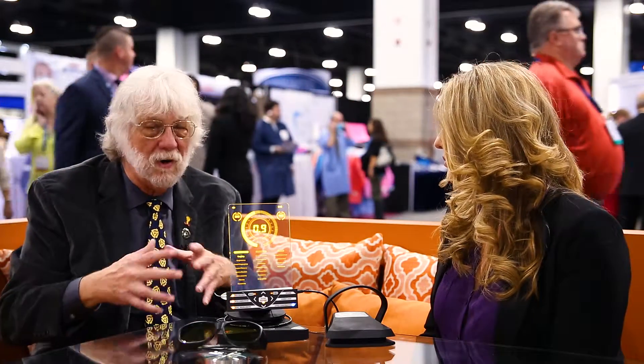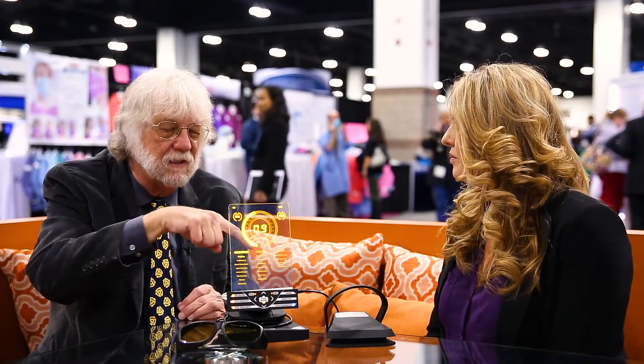It's a thousand dollars down and six months to pay. So any dentist should be able to walk into the laser space, and as a GP, I don't know how you practice without a soft tissue laser. Especially on the digital side — we're taking digital impressions, and there are so many applications where you have to get the area cleaned up so the optics of the cameras and the 3D cone scanners can see what's going on. This is a beautiful piece of equipment, by the way.